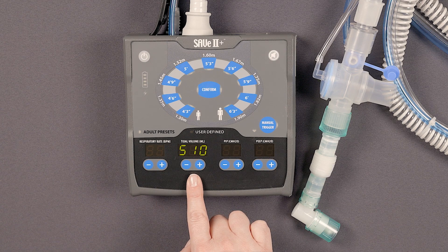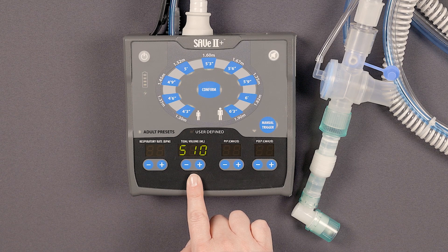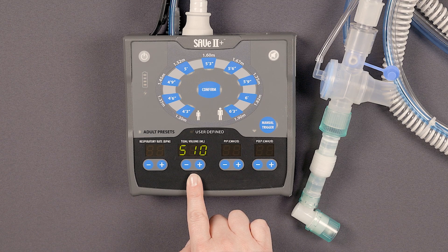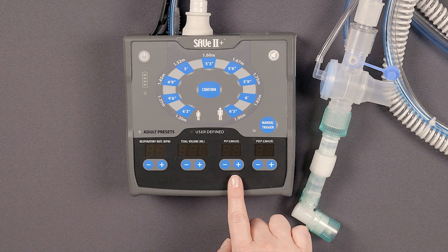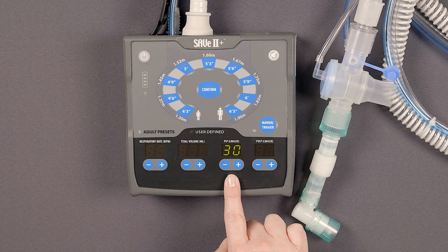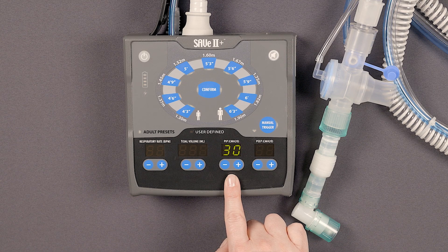These buttons are used to control and display the tidal volume and monitor the volume of gas delivered. This is also used to control and display the peak inspiratory pressure, or PIP limit, also known as the pressure cutoff. Once the setting is confirmed, the display stays fixed, but the ventilator measures the peak pressure breath to breath.